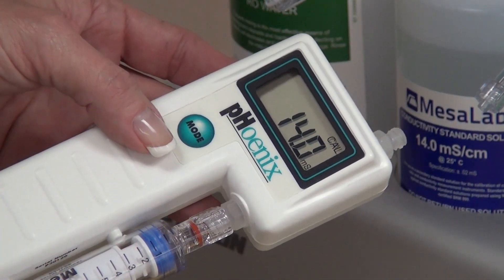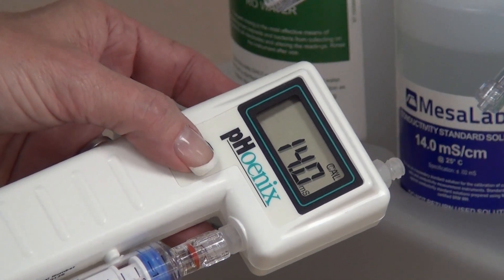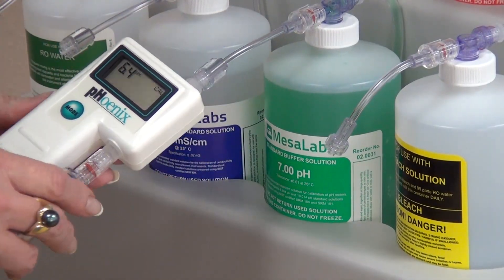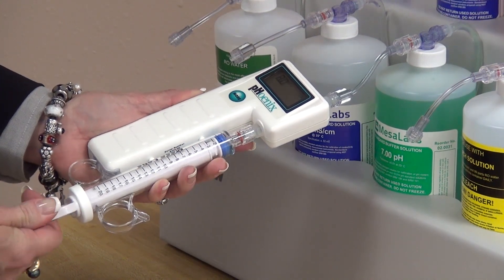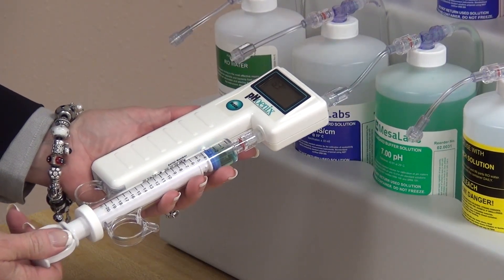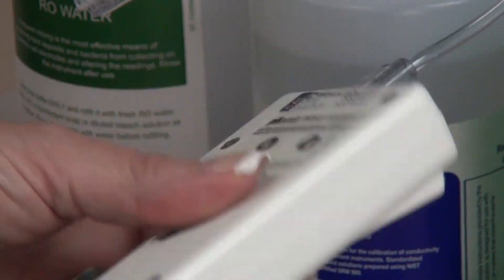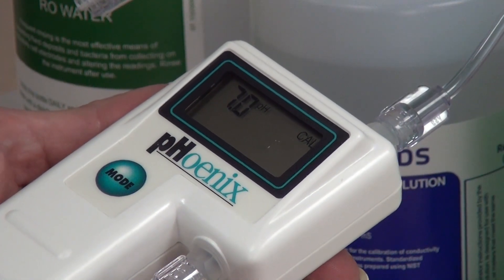To adjust pH to 7.0, press the mode switch until the pH function is displayed. Now we are showing pH. Next, we will connect the Phoenix Meter to the 7.0 pH buffer solution. Initially flush the 7.0 pH through the cell, then draw a sample of the solution through the cell until the syringe is one-third to half full. When the reading stabilizes, press the up or down switch once and the system will automatically adjust to 7.0.